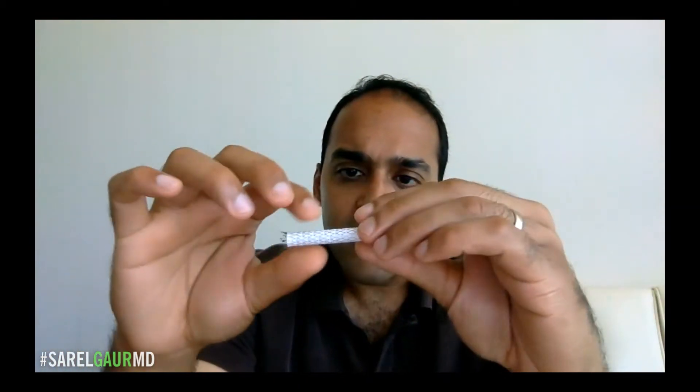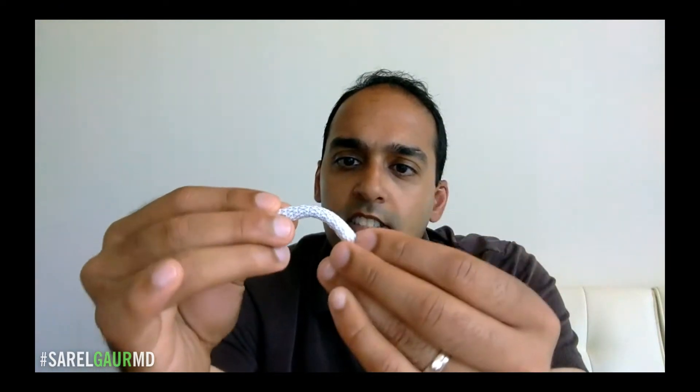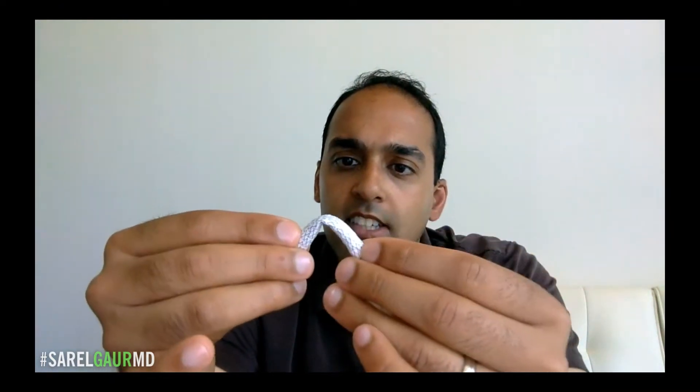What's the deal with this stent? It's got decent radial force. In my opinion, it's got poor flexibility. If you try to flex this stent, you notice it tends to kind of kink. You can sort of see what the lumen looks like there — obviously it's not going to be very patent when it's being flexed. So in my opinion, I would not want to use this stent for TIPS because the TIPS tract is often tortuous, and I don't think this stent would be ideal.